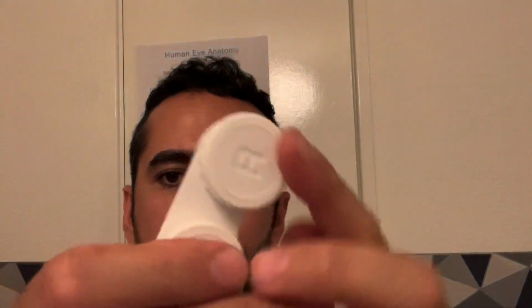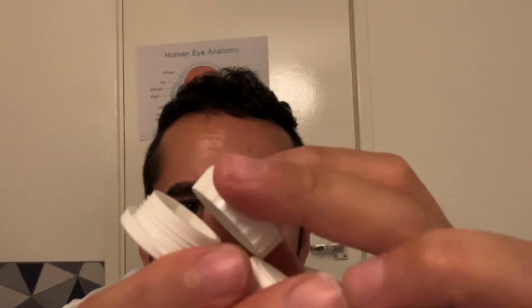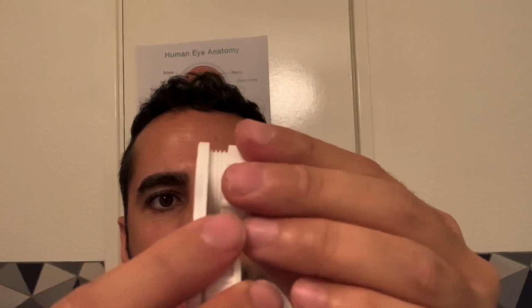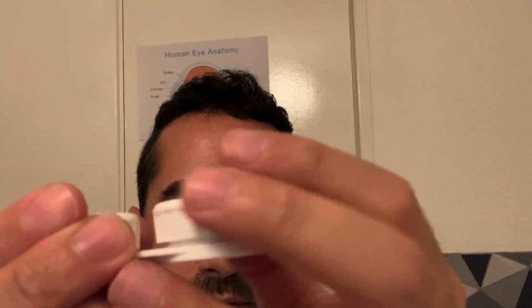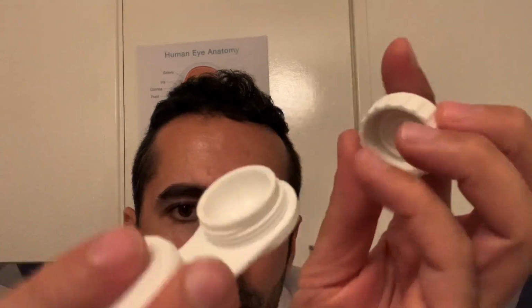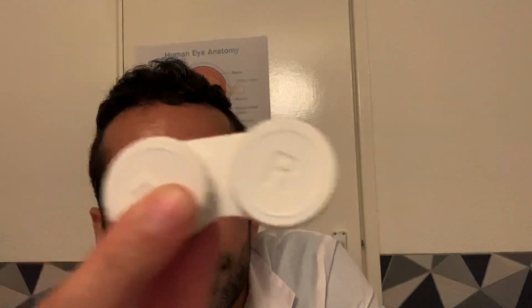Contact lens labelled up, right lens and left lens. These obviously have to be changed every few months. These are plastic. You have a little space there to store your contact lens and pop your solution in. And we have the left pot. And there we go, hollow space for the contact lens and solution once those are in. Seal it tightly, and there you have your small and discreet contact lens case.